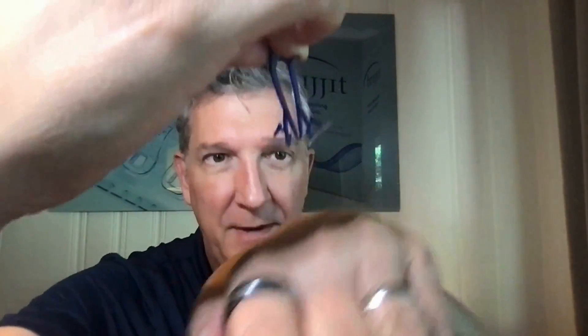What you do is put it — I'll use my hand as an example so you can see how it works. I'm going to go down, I'm going to relax, and now I'm going to release it. And you can see — I don't know if you can see — it's on my hand. Let me do another one.